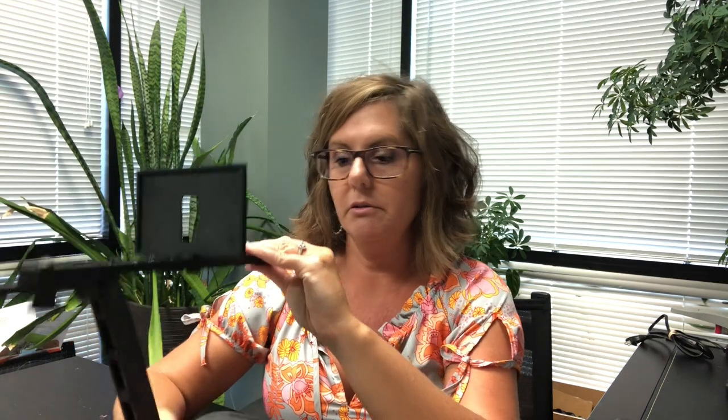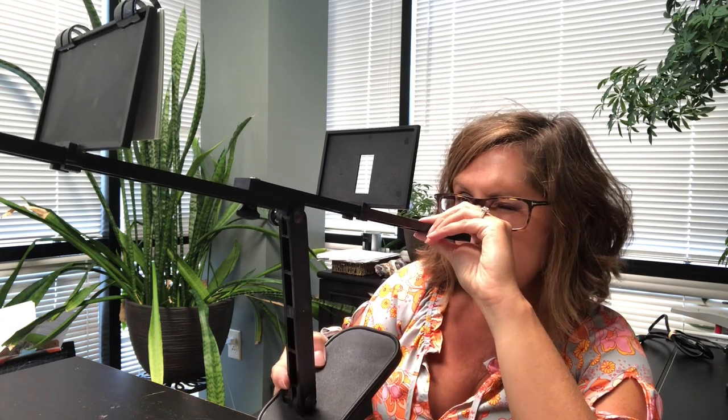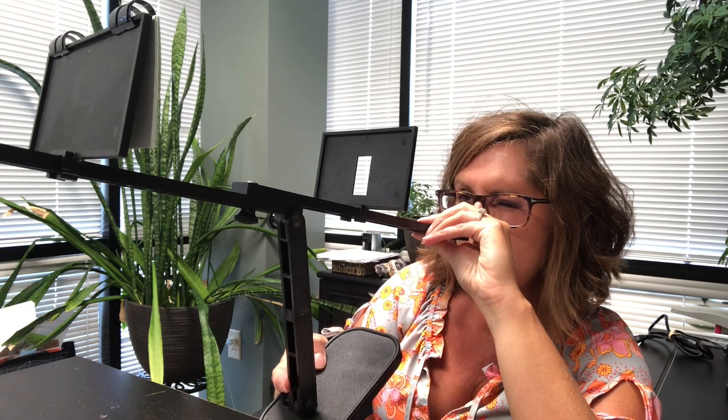What you do is hold this up to the end of your nose, look through the window, and there's going to be a picture down there. You do a quick little test to see — can you see it with that eye? Switch — can you see the image with that eye? Yes. Now can you put it together and get a fused, single image with both eyes together? I can. I see a little sailboat.